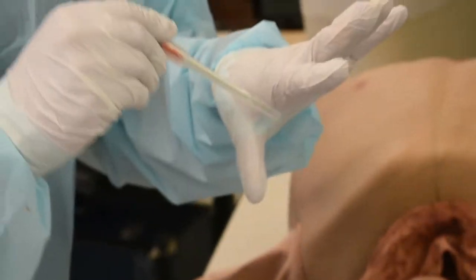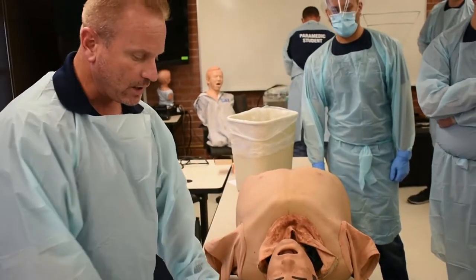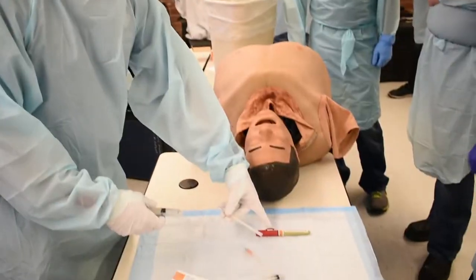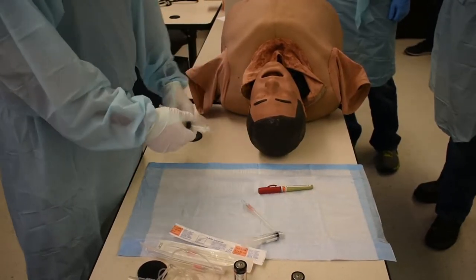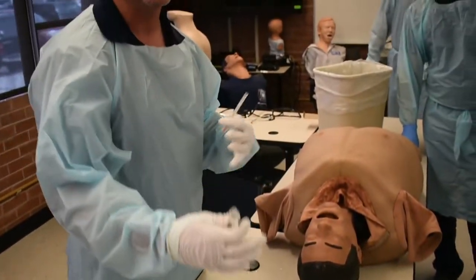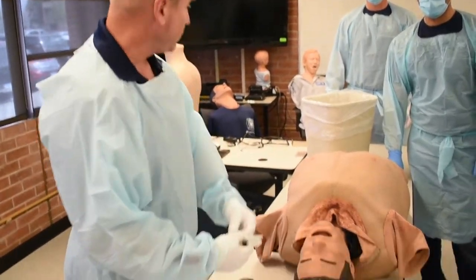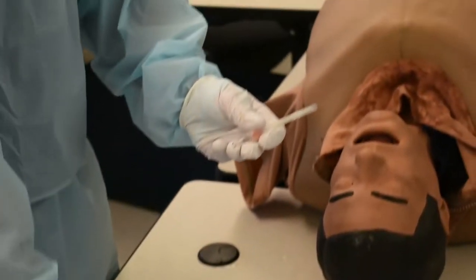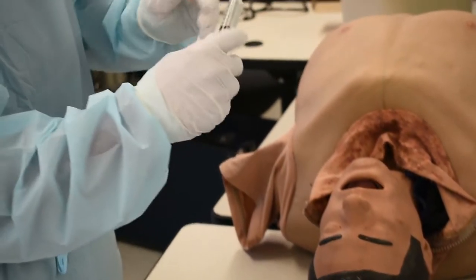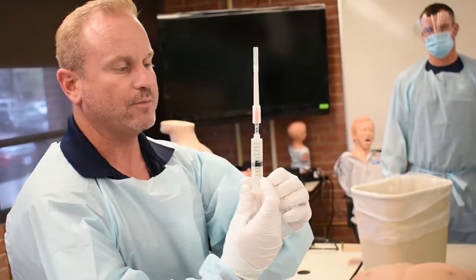The ARS just doesn't have this back on it. So either with or without a syringe, the minute I drop it through the patient's chest, it's going to start venting. The preferred way is to keep your needle and your flush together. So when you pull them out — we talked about Hick's law — instead of having everything in five different spots, it's going to lead you to failure. My needles and syringes are just like this in my bag. I pull them out, pull off the back, squirt half my saline flush out, leaving half saline and half air for me to pull, and hook it onto the back of my needle.